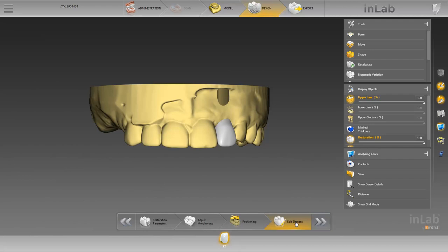Alternatively, we can now turn our cemented restoration into an occlusal screw retained restoration. The data for the position of the Atlantis abutment screw channel is transmitted with the DXD file and stored in the gingiva mask image catalog.